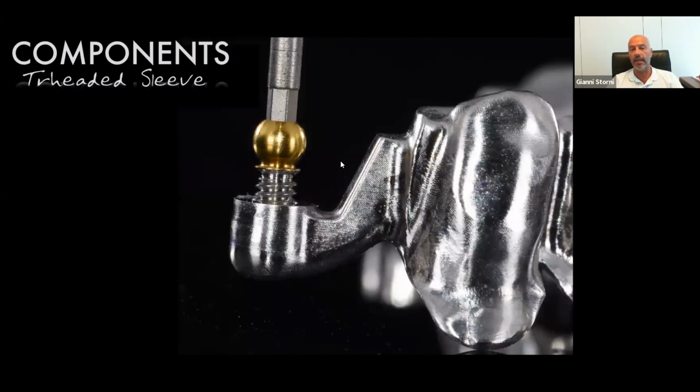The last way is I mill a distal extension attachment already threaded, with a hole. The OT Techno, they thread the hole and they bond the sleeve inside with the composite that we have. It's called OT CEM, a composite made for the attachment, metal to metal, and then you screw the attachment inside.